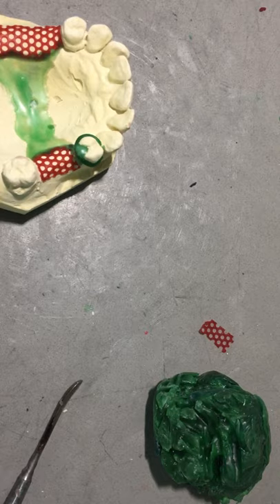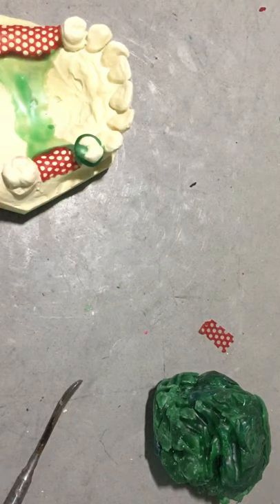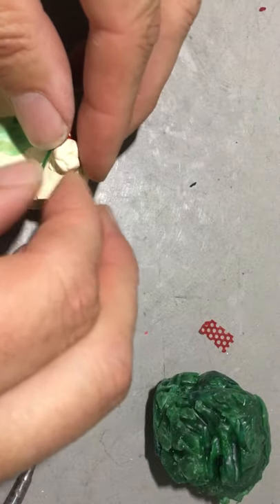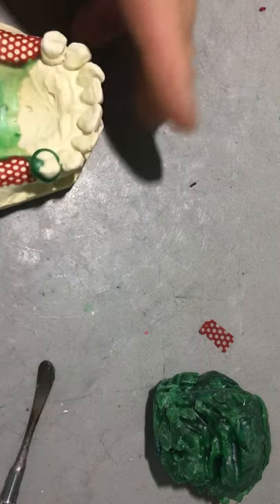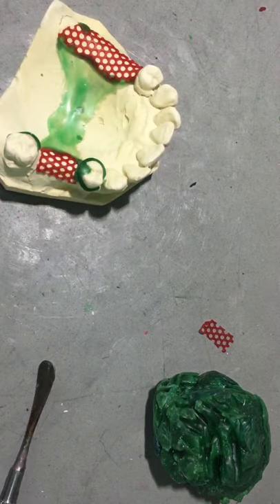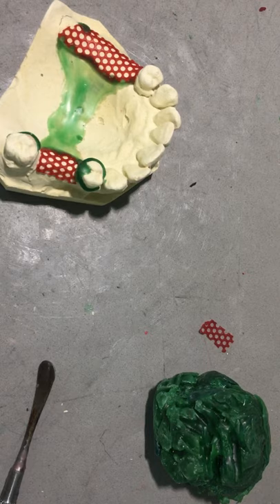Now there are different types of clasp patterns. We have some here, the Christmas tree type ones - you can use these, they can be used for I-bars sometimes. But usually for molars the larger ones are a little easier. Because of the trimming, plating, and polishing process, I would tend to err slightly on the thicker side of my clasp patterns, to give me some freedom in polishing and trimming, and if I need to reshape something.